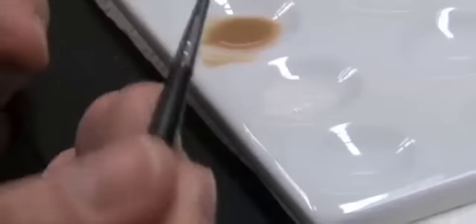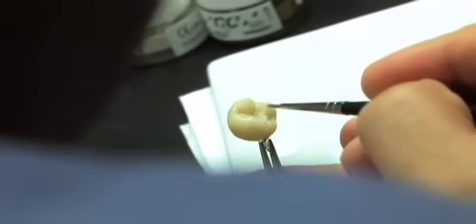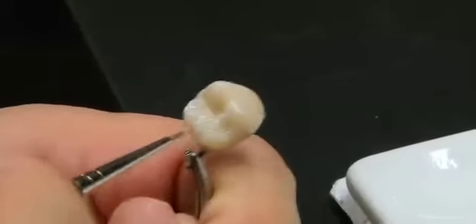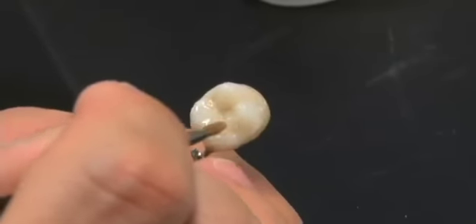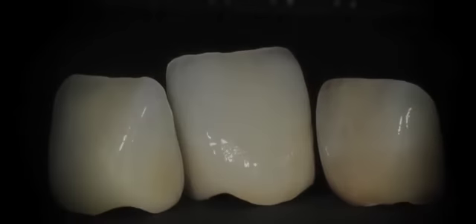One-body is compatible with conventional porcelain alloys, allowing you to build up porcelain body layering by using only one porcelain powder. In an ever-changing industry, GC has developed a revolutionary new material to make laboratories more productive in less time. Time saved equals money earned.